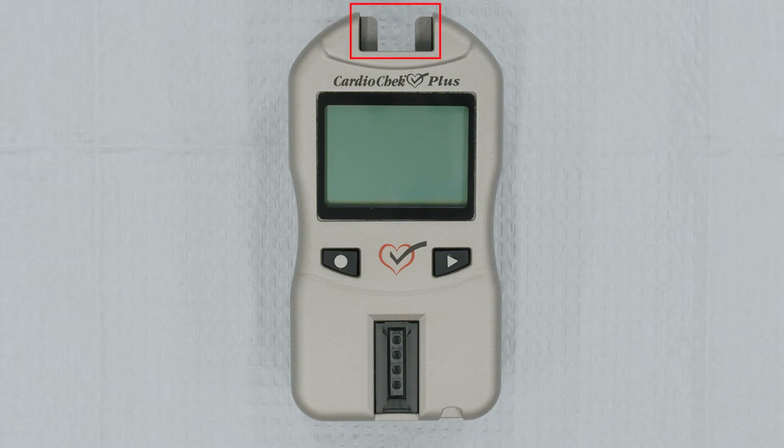The Memo Chip port is where you'll insert the memo chip that comes with your PTS panel's test strips. The Reflectance Test Strip slot is where you'll insert the gray check strip when checking the analyzer's electronic and optical systems, and your Reflectance Test Strip when it's time to run a patient test. The USB port allows you to connect to a PTS Connect printer.